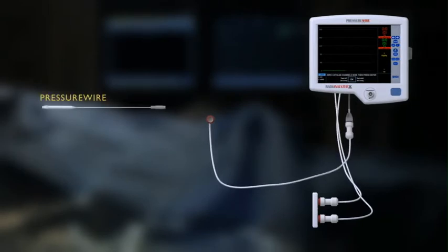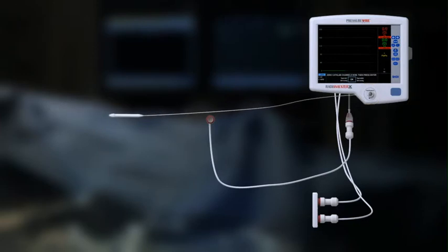Connect the pressure wire to the jack on the front of the instrument. Continue with the RADI Analyzer Express unit setup.